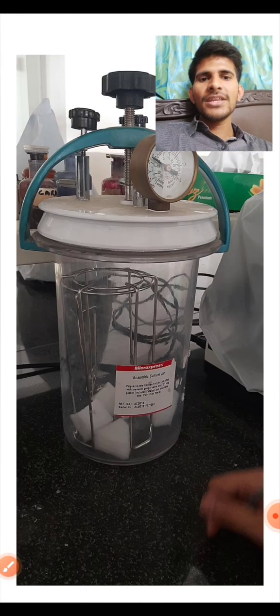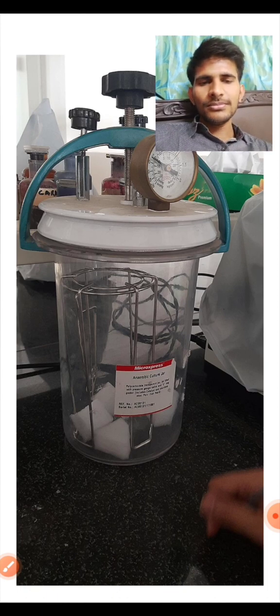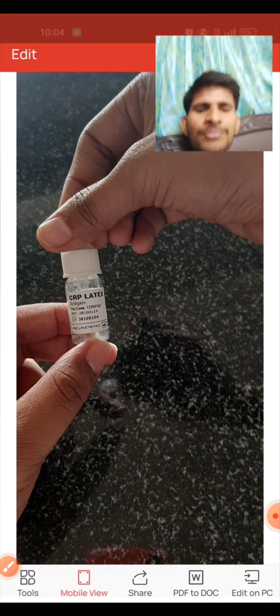Next, this is also another anaerobic instrument, and it helps in growing anaerobic organisms. This is a McIntosh and Fildes' anaerobic jar. It is written on the upside also. Next, there are some vials. We will just go through what kind of vials are there.